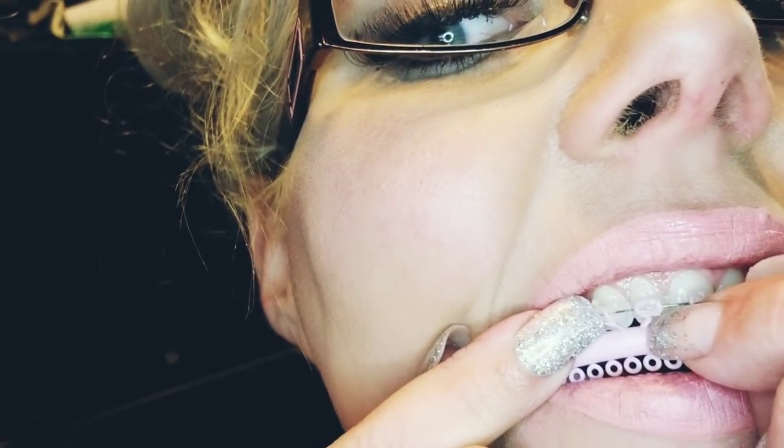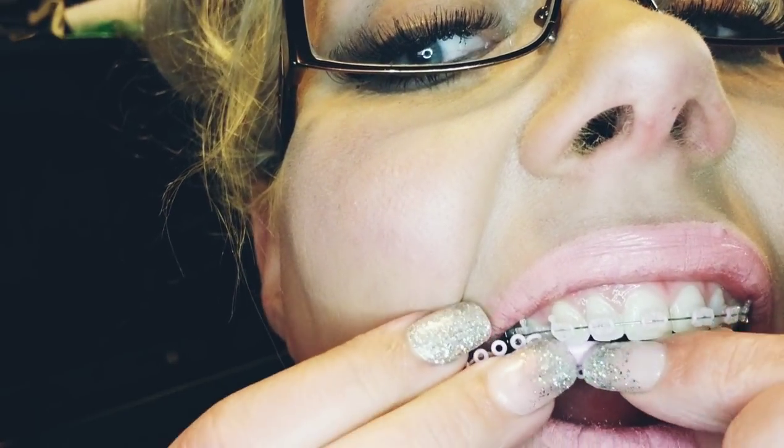Put it down there and move it around and around. If you lose one, it's fine — there's plenty. Let me finish this up and show you what it looks like finished. You can already see the difference — look how yellow the old ones were. It's insane.